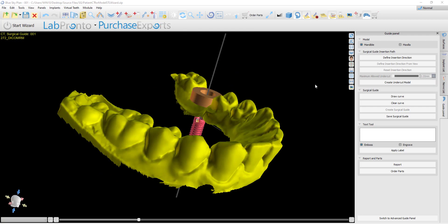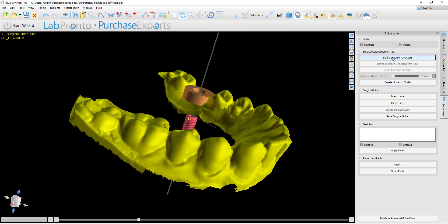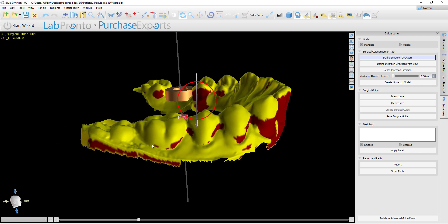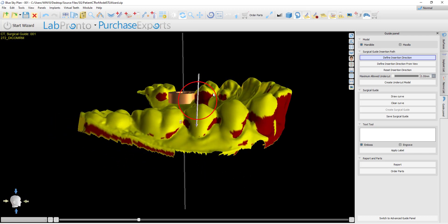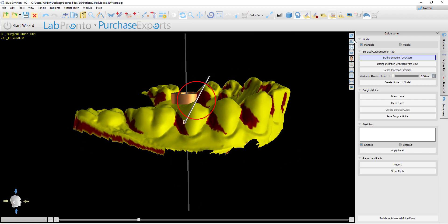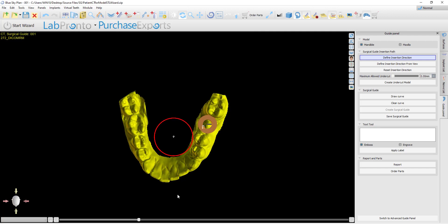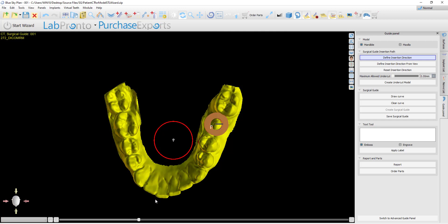Now for the user who would like to define a custom path of insertion. Looking at the original model on the screen, this user simply clicks Define Insertion Direction. The user can use the arrow on the screen to define the insertion direction, and we see that the software indicates the areas that will be blocked out to have the undercuts removed. Or the user can simply rotate the model and click 'Define Insertion Direction from View.' As mentioned at the beginning of this video, the angle that is perpendicular to the model we're looking at is how surgical guides were created with undercuts removed in previous versions of Blue Sky Plan.